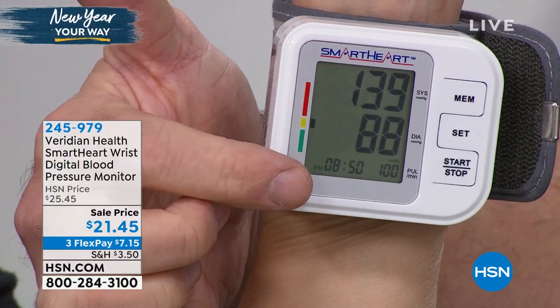So those 60 readings that Jen can bring right to her doctor — if she's concerned, especially if you're taking blood pressure medication, you need to take your blood pressure at least once a day to work with your doctor. What is remarkable is that I know people personally who eat healthy, work out every single day, and they were still diagnosed with high blood pressure. I have had high blood pressure when I was always consistently low. After the kids came, something happened. At the end of the day, these stats are vital — this is your way of knowing more about yourself.